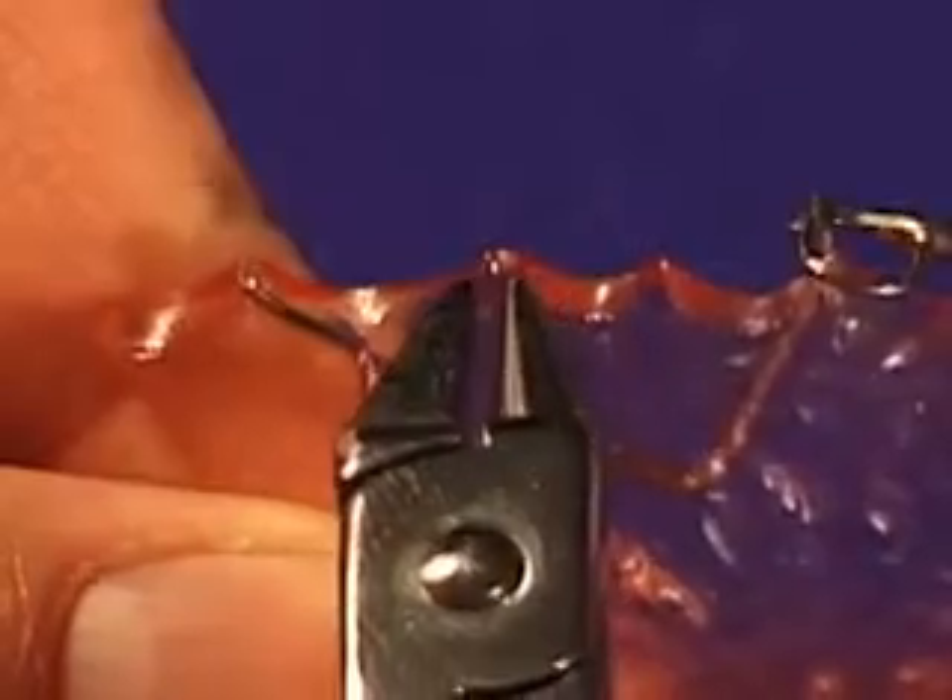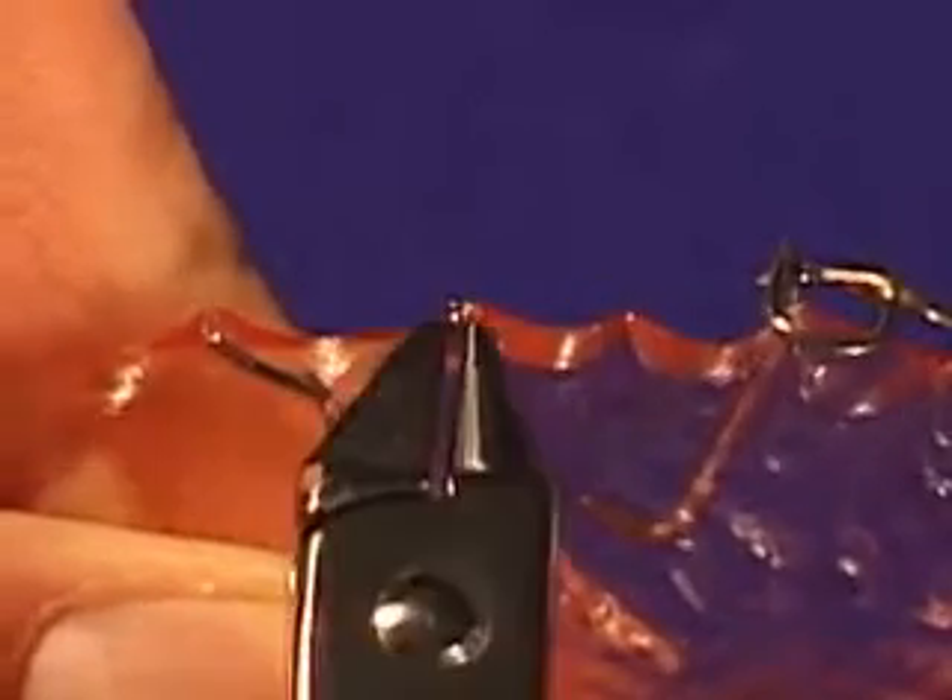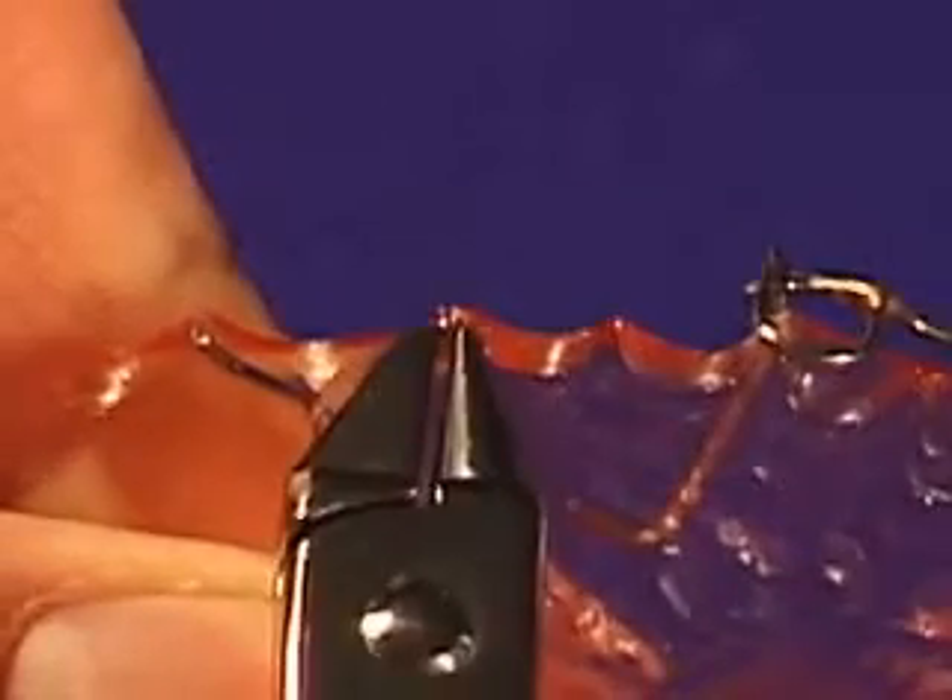There are a few adjustments to make on this clasp. You can adjust the tip of the wire or tip of the clasp simply by grabbing with a pair of pliers and turning the wire against the tooth.